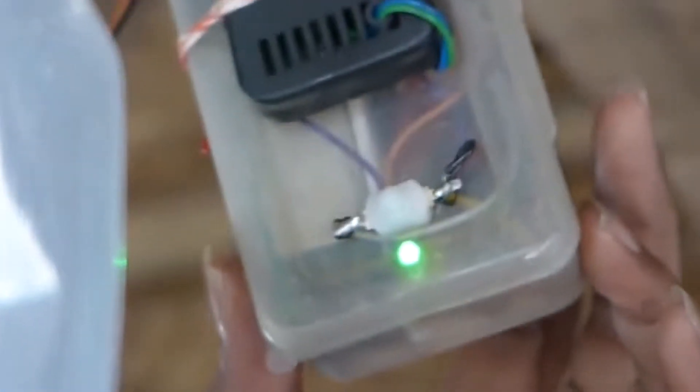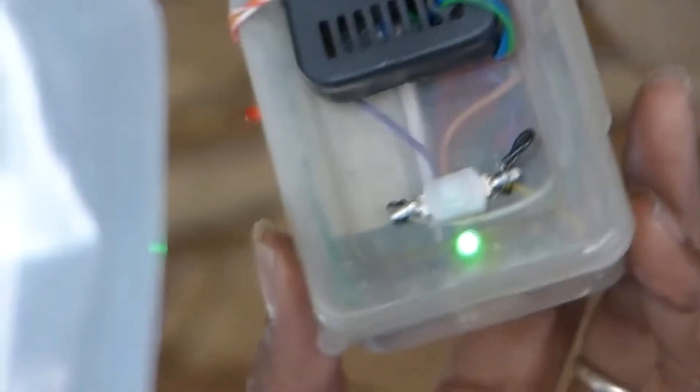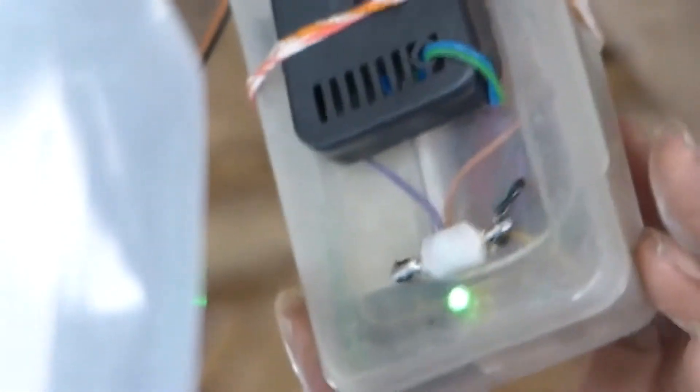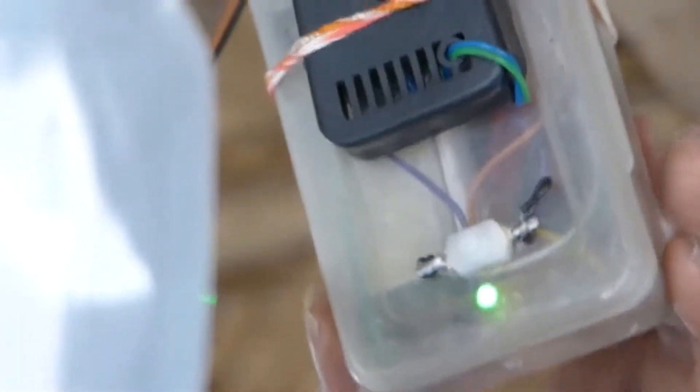Now the alarm has started triggering and the fluid is roughly 70 to 80 milliliters or something like that, less than 100 milliliters. Now this triggering will go on, the alarm will go on unless and until somebody attends.